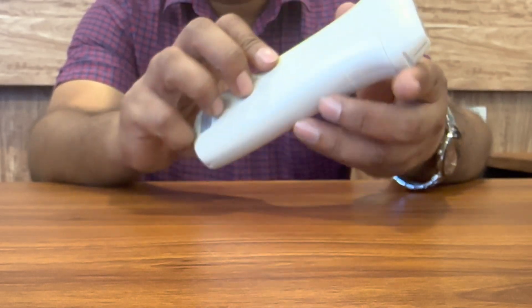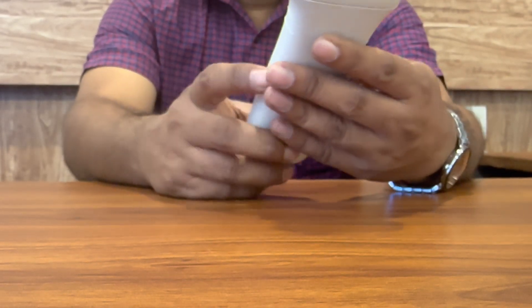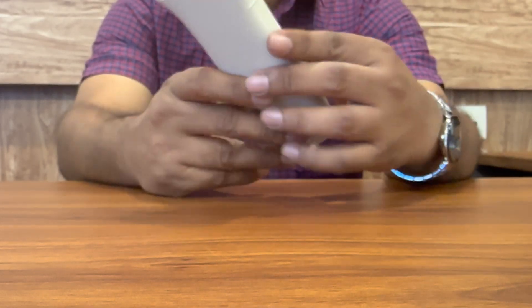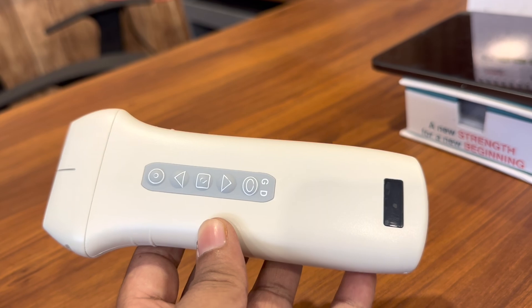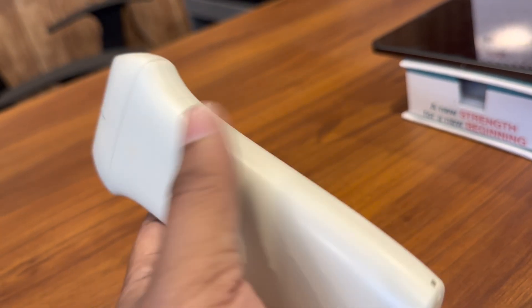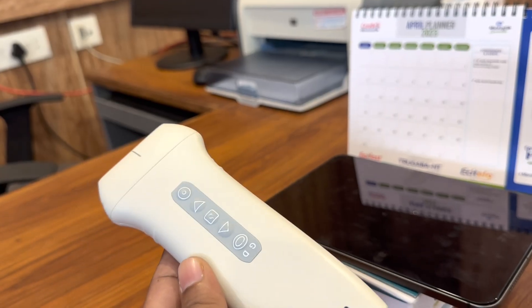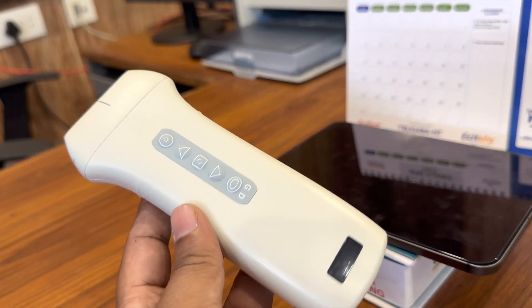This device has a built-in Wi-Fi transmitter. This is how the system connects with iOS or Android devices. You can use either a mobile phone or a tablet. It uses its own 5G Wi-Fi transmitter — no Bluetooth, no external network. The functions are controlled by a free downloadable app available in the Play Store or App Store, which is always upgradable.